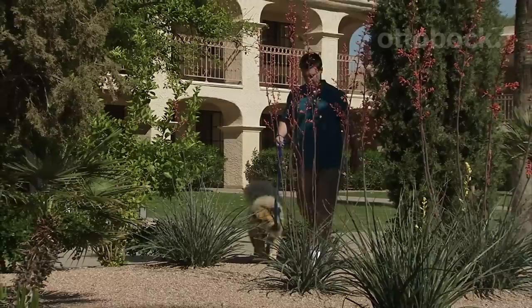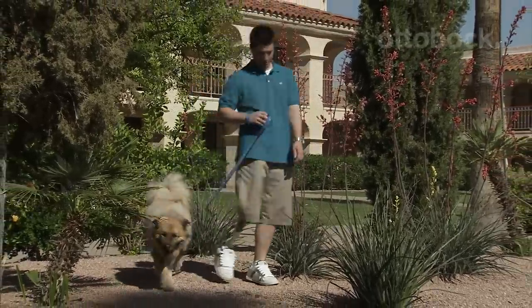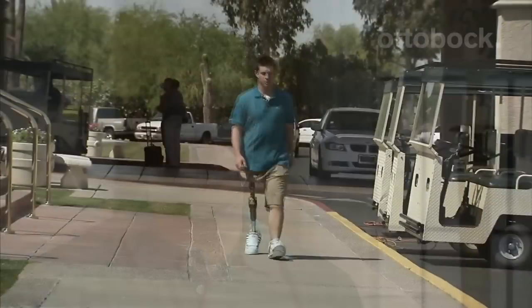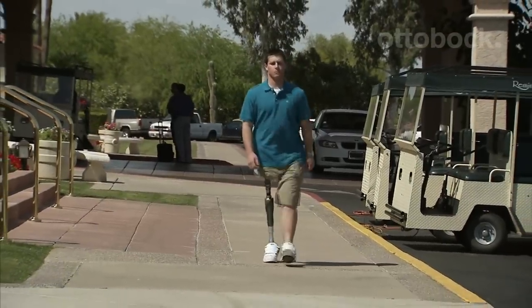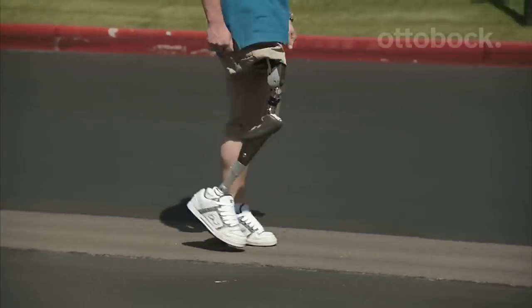It's actually really nice in improving the look of your gait. When you walk with a conventional hip, you're used to seeing quite a bit of pelvic thrust every step as the heel hits. But with the Helix, that hydraulic unit makes it a much more natural-looking gait, and it takes out that step that would normally make the gait look really awkward.